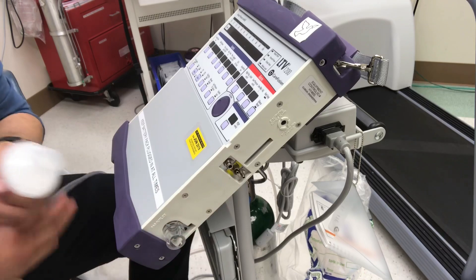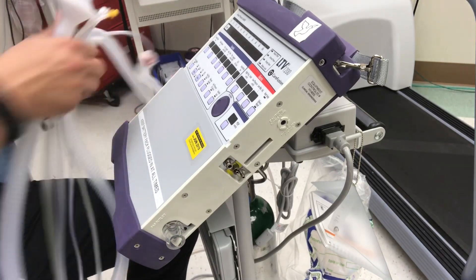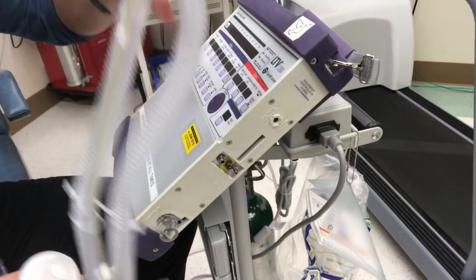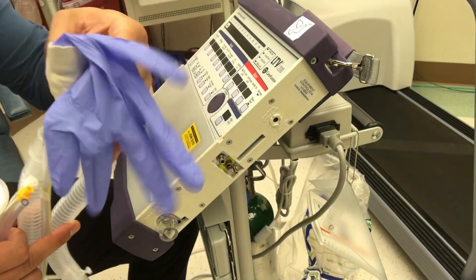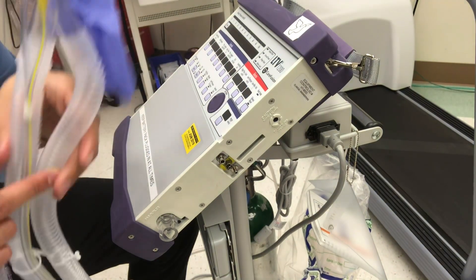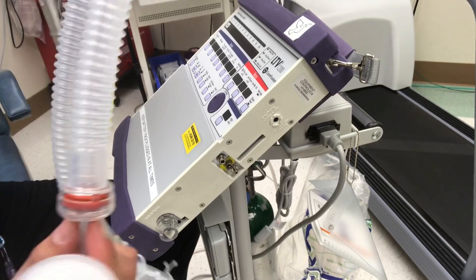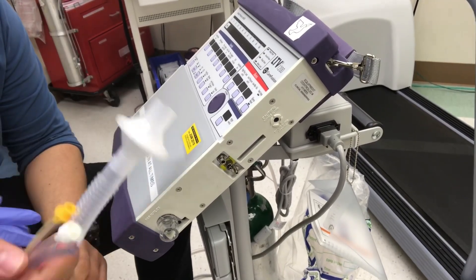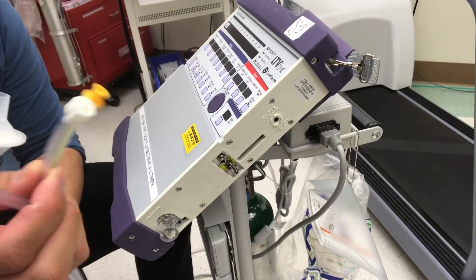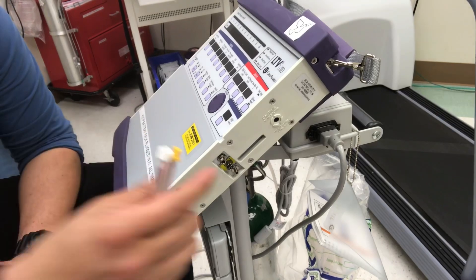When you turn the LTV, you'll see that there are three inlets because we have a very complicated circuit. Here's our circuit with our inspiratory and expiratory limb. This is our test lung, but we have our expiratory limb ending here and our inspiratory limb ending in the filter.